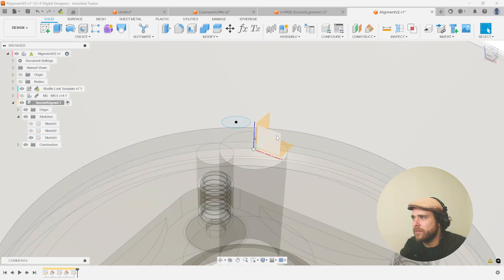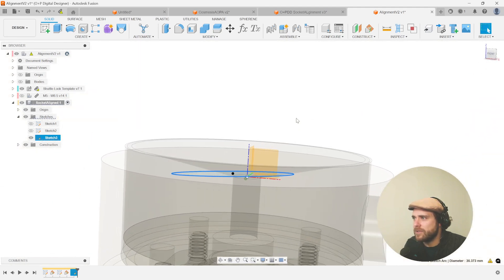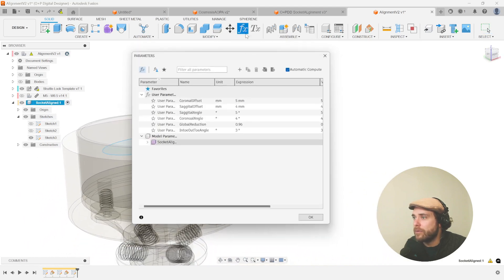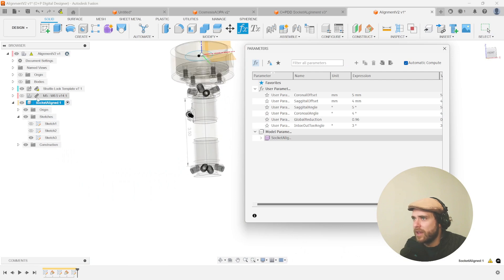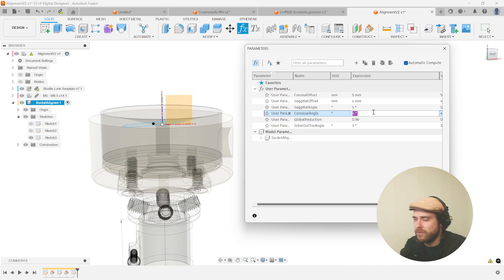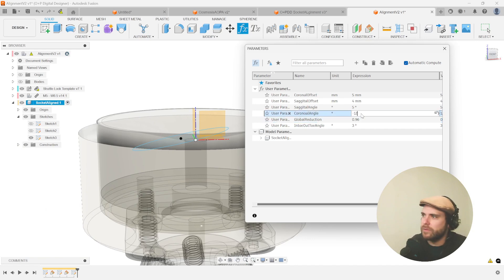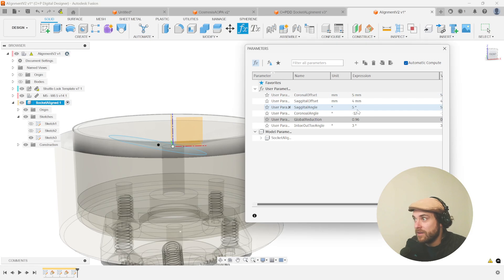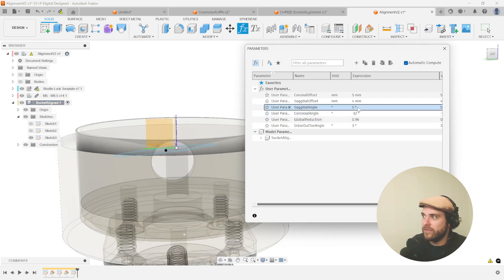Let's bring something back in the background for perspective and test this out. Going back to our parameters window and adjusting — looking from the front — let's change the coronal angle to six degrees. I can see that circle has moved. Something really strong like 12 — there we go. If we go negative 12, we're going in the opposite direction. Sagittal angle — currently five degrees — what happens if I go negative eight?